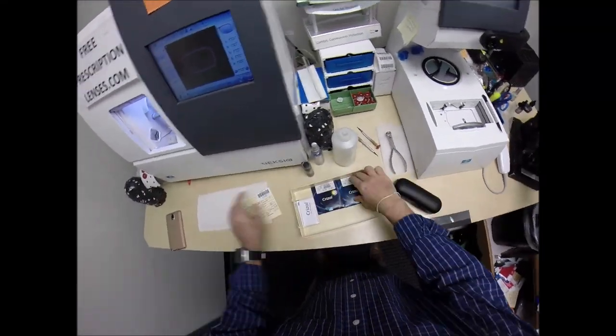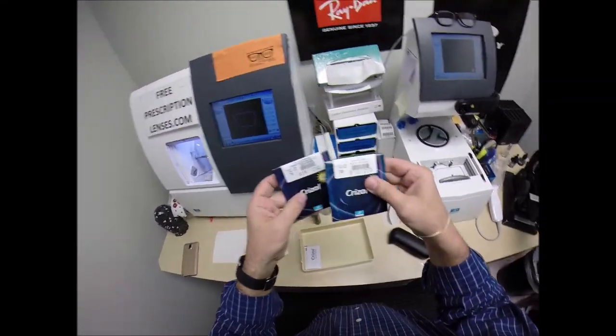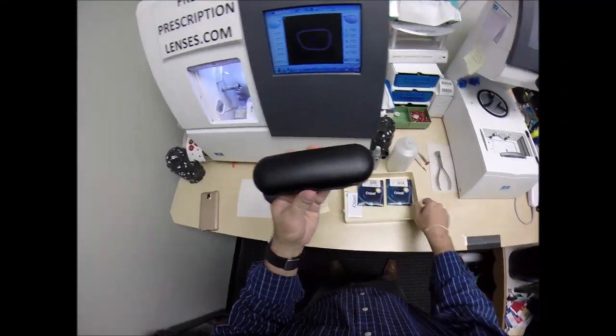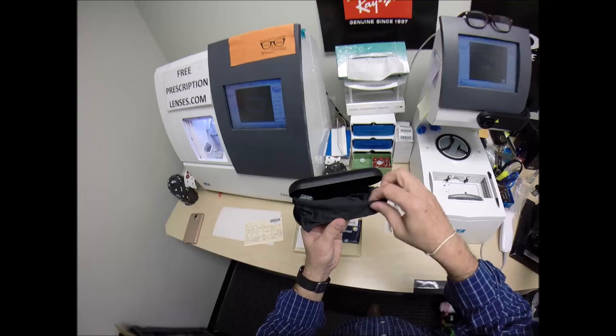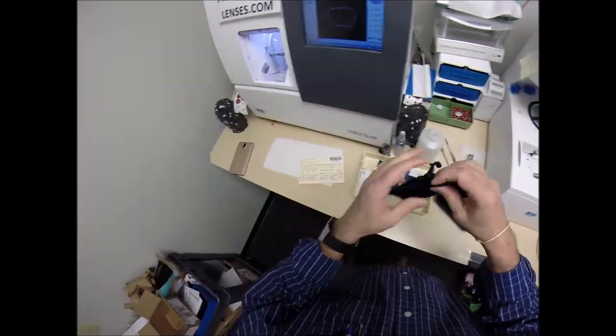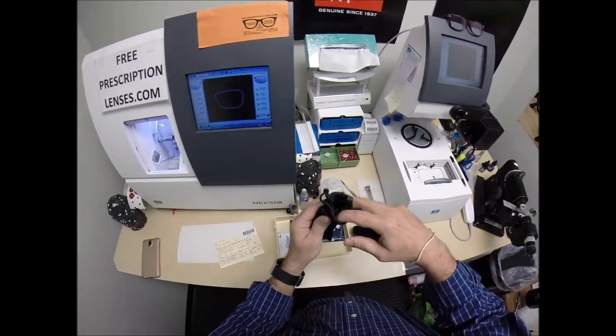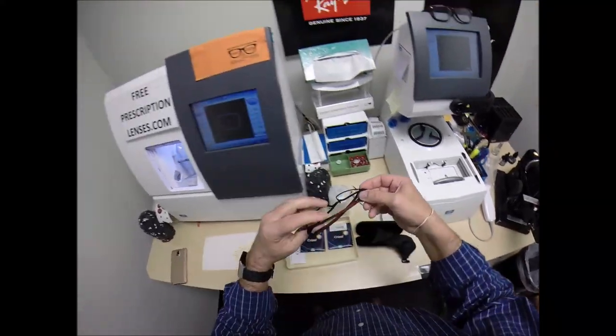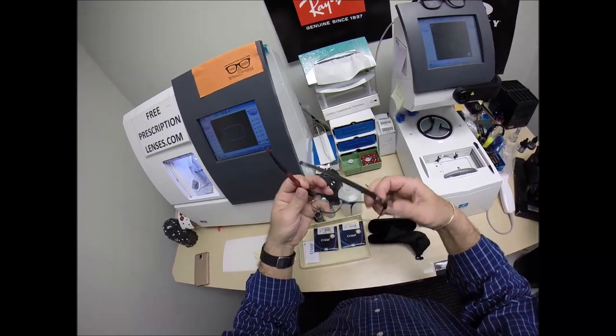See more better with freeprescriptionlenses.com. And now I'm going to cut some Crizal Sapphire lenses for your gently used frame. He got these off the internet and mailed them to me.